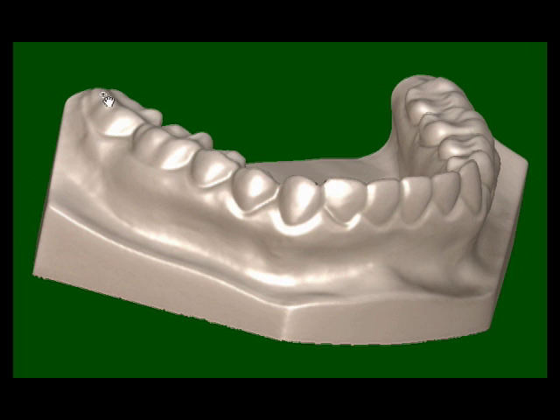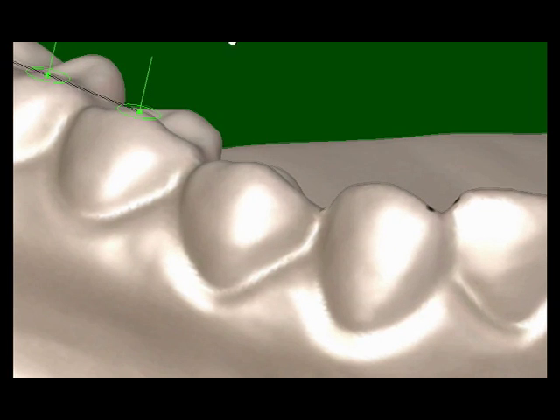Next, contact points are defined. As the designer clicks on the model, software automatically repositions the points to the highest location on the tooth with respect to the occlusal plane.